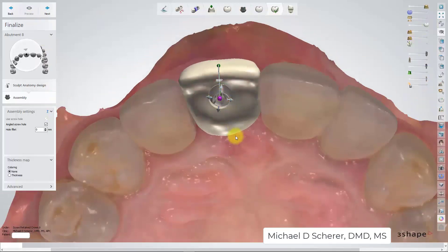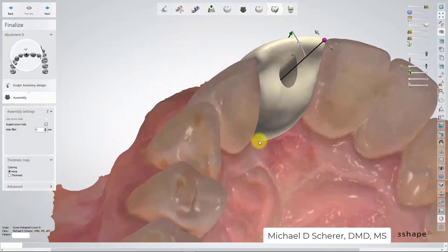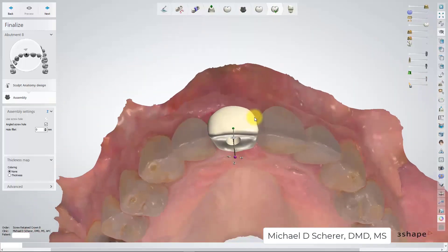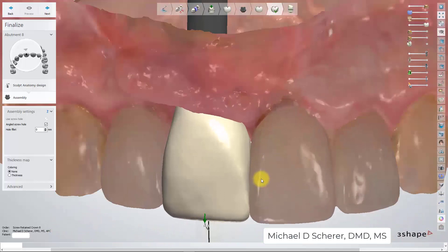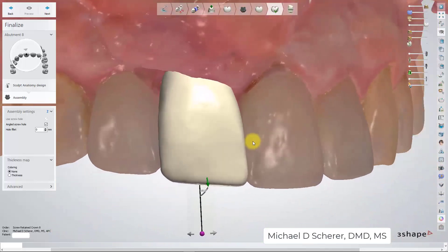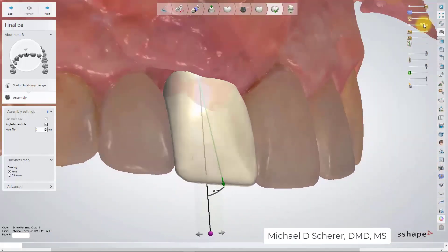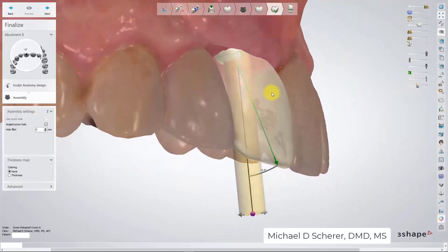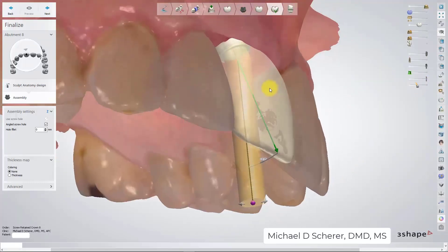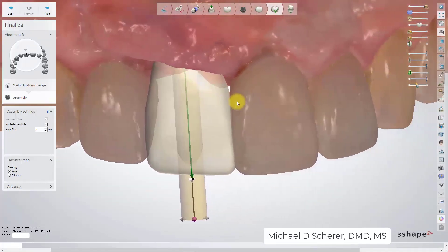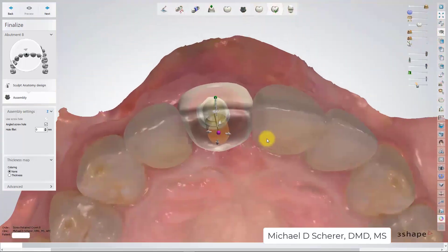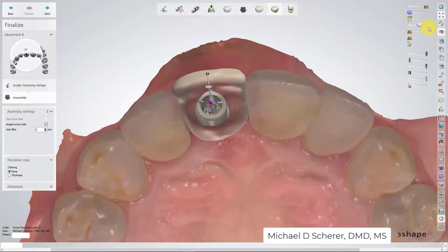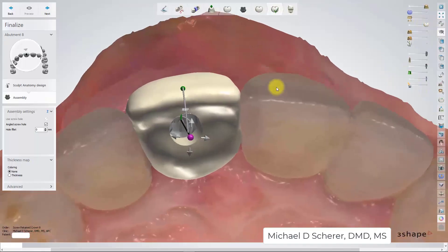Some would call this a paradigm shift in how we approach implant dentistry — meaning placing the implant in the ideal bone location, and then ultimately the digital technology allows us to compensate for the non-ideal restorative position by changing the screw channel access simply with the click of a mouse. Now we're going to take our crown design and send it off to the mill and deliver a restoration.